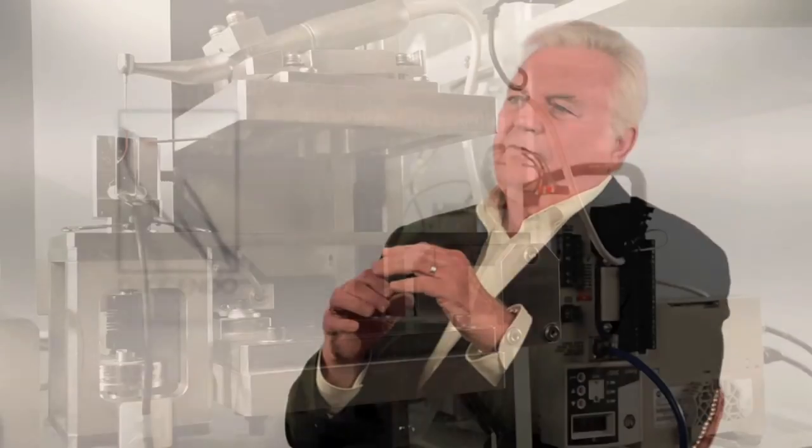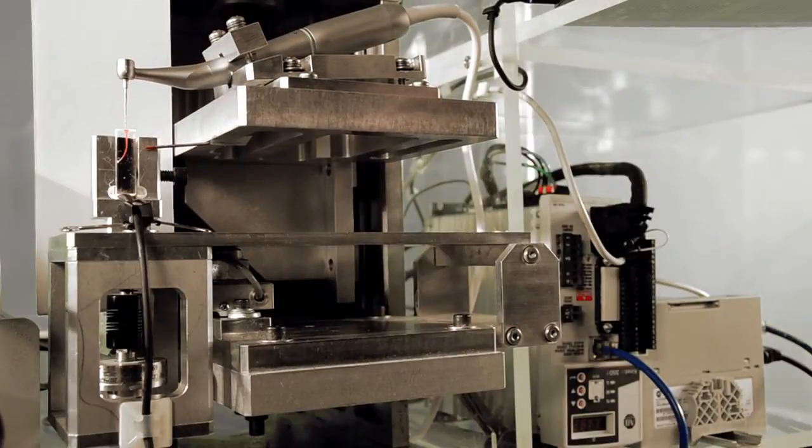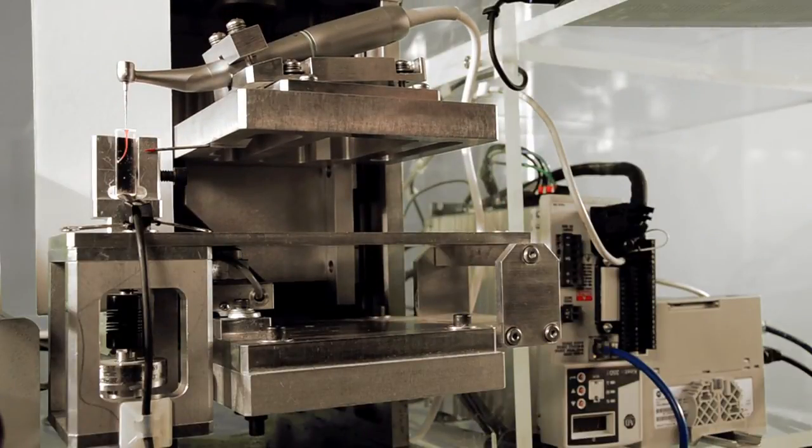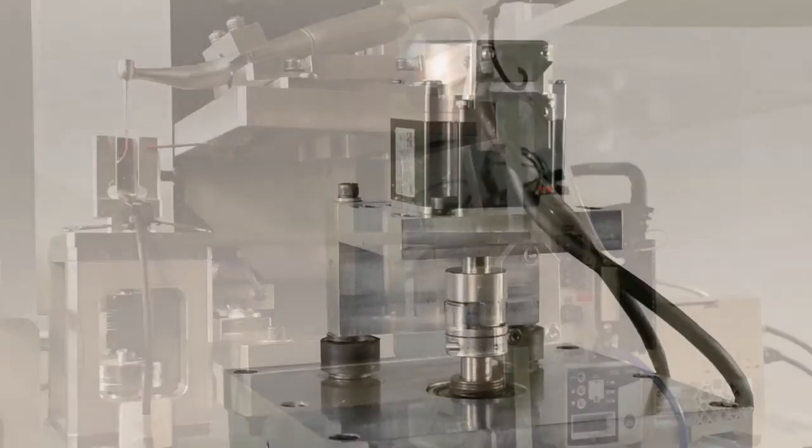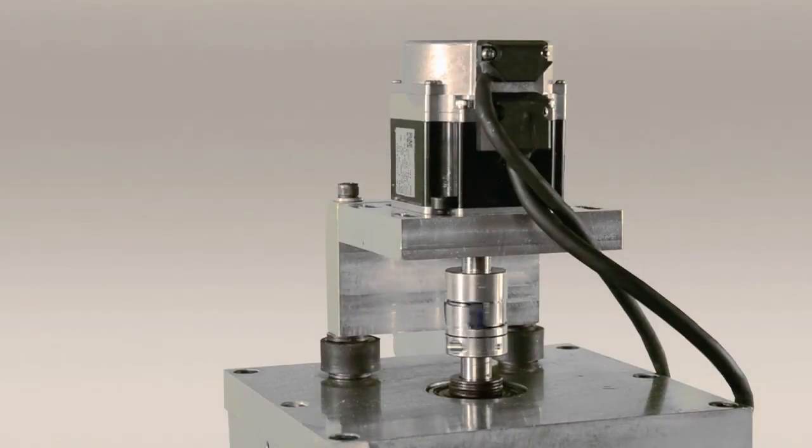Our evaluator accomplishes this by using very sensitive torque and pressure transducers, in concert with a high-performance servo motor.